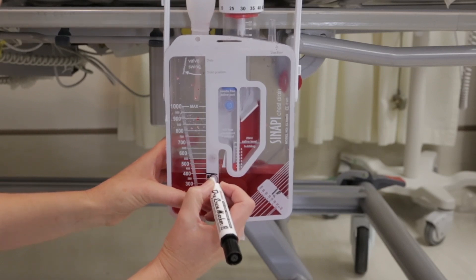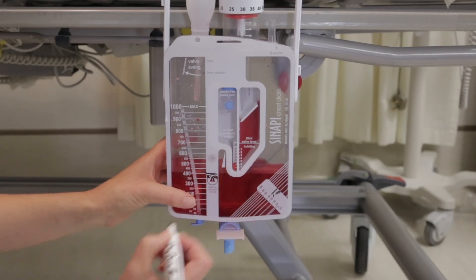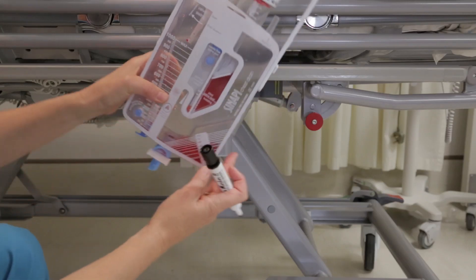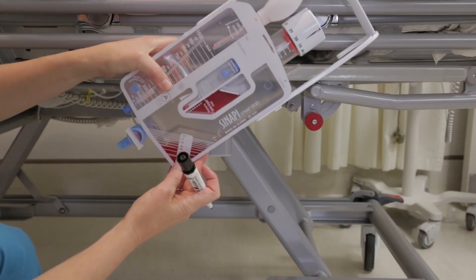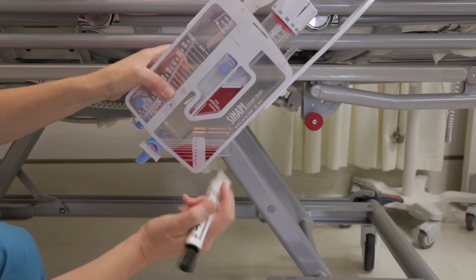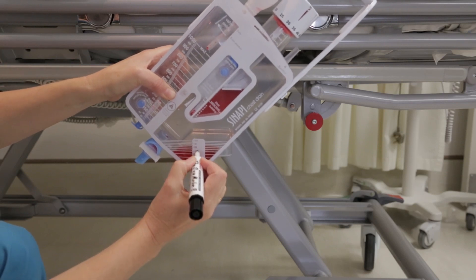Do not increase wall suction further as this will increase noise levels. Regularly monitor and record chest drainage volumes. Make use of the writable surface on the rigid container to mark hourly drainage levels. To accurately record small drainage volumes, the device can be turned sideways.